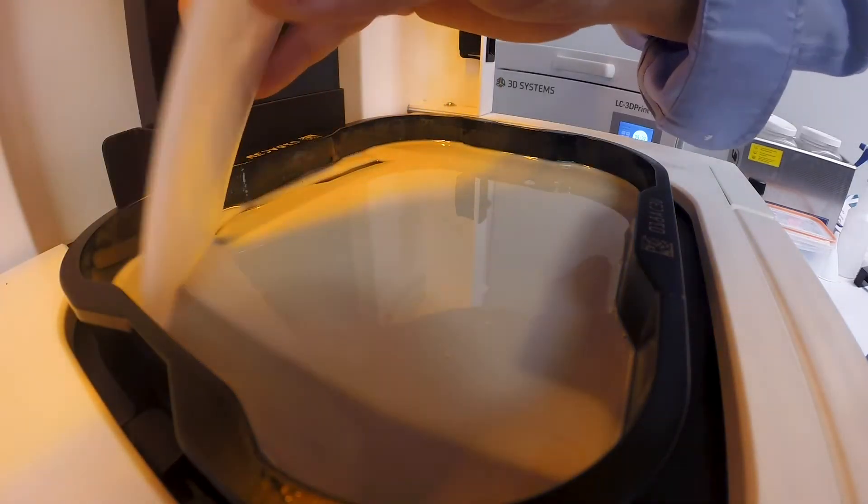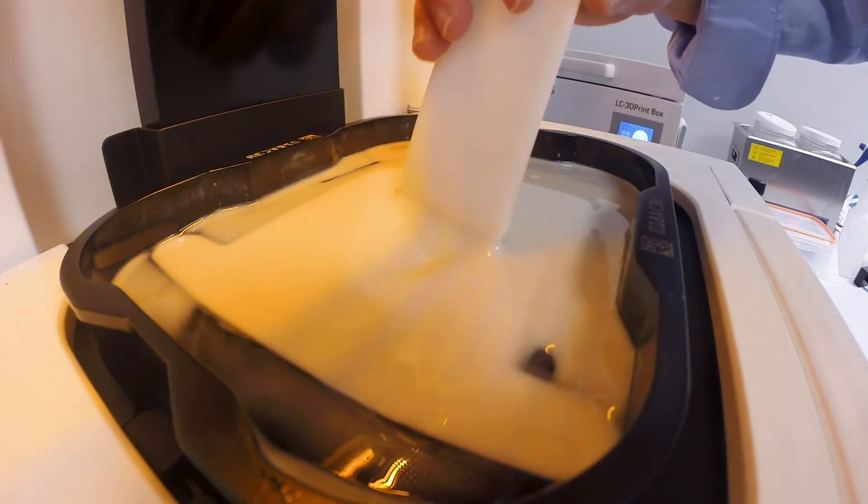The model 2.0 material polishes up really nicely, and I've had doctors call me after I send them a wax up and they say, is this white wax? Did you hand wax this at the bench? No doc, I 3D printed it, that's a digital wax up and I polished it.